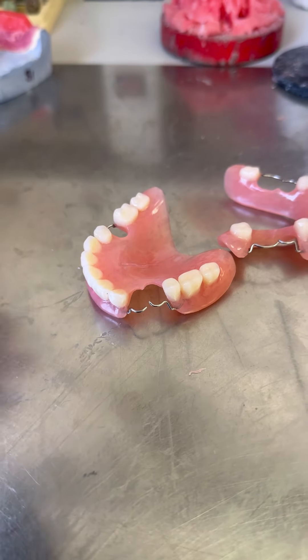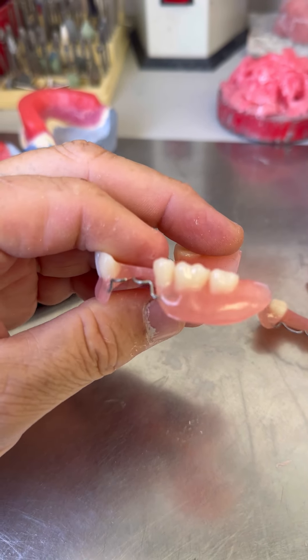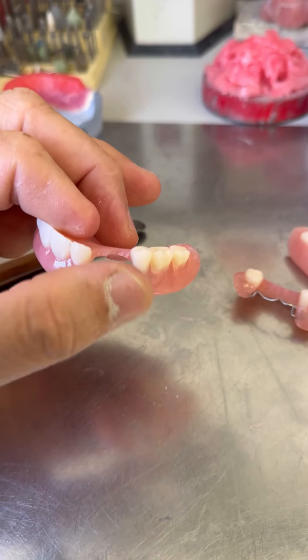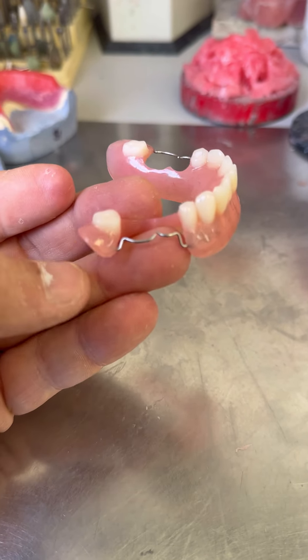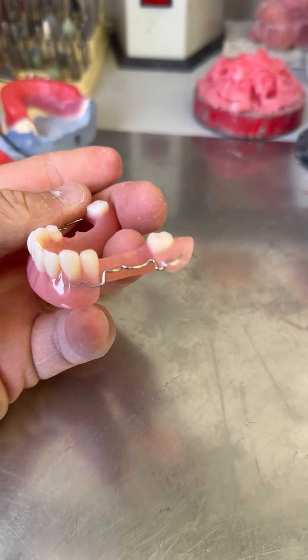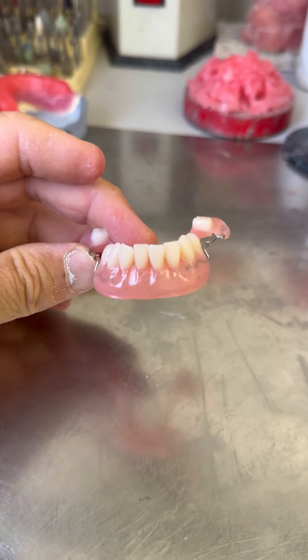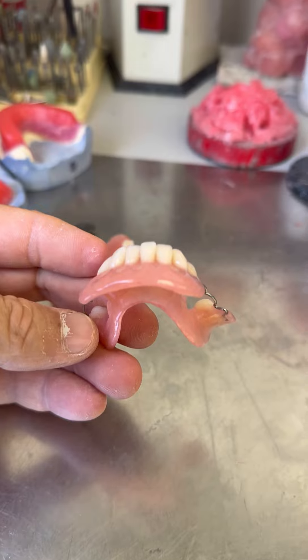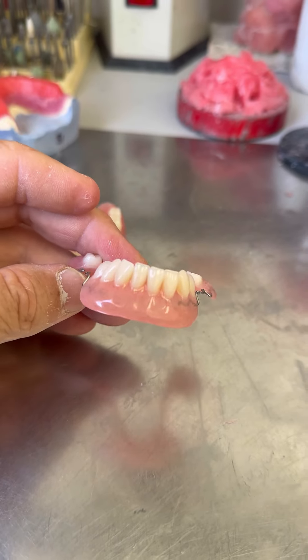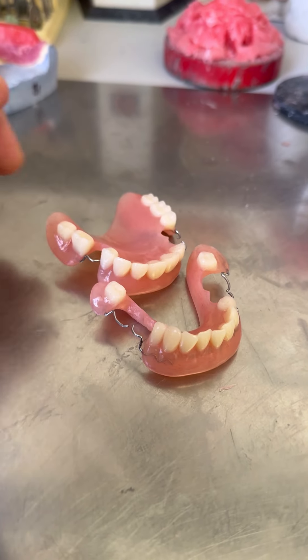С обратной стороны тоже — видите? Вот они открытые. Открытые и здесь тоже. На клык и на четвёрку. На шестёрку и на пятёрку — крючок. И с этой стороны тоже снова — на шестёрку и на пятёрку. Те же зубы, которые берут в не очень красивой дуге. Вот так вот. Будем отсылать.